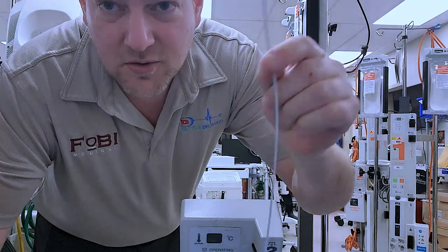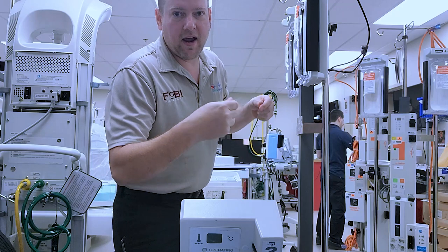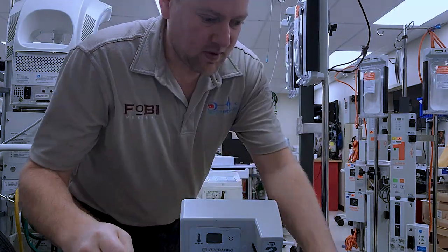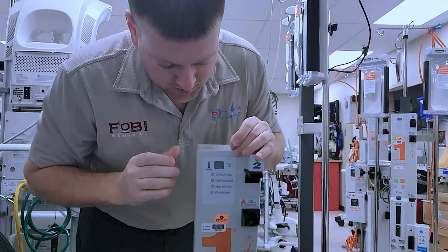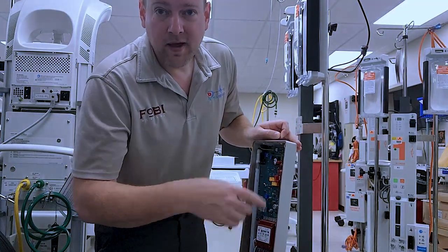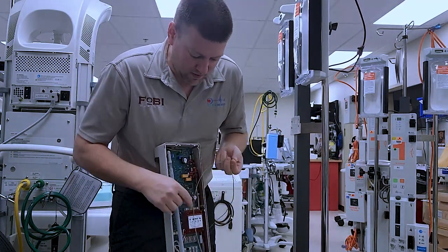Somebody showed me this trick using a braided steel cable with two little crimped eyelets. I'm going to hang it from the stand and take two screws and we are going to fit them right here and right here and it's going to suspend itself. So, ready? Do that right now.